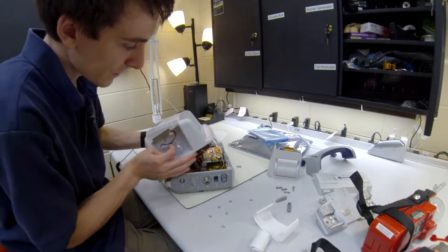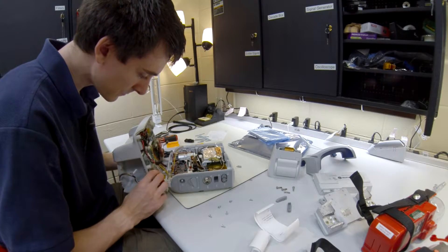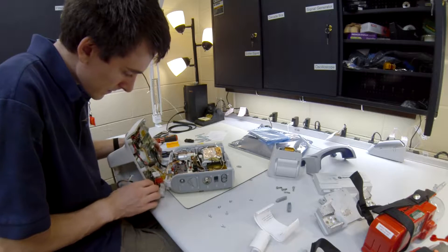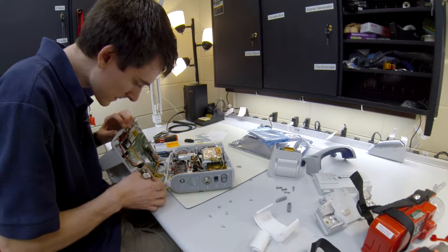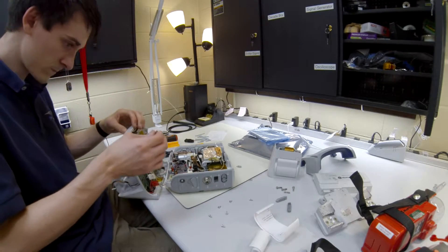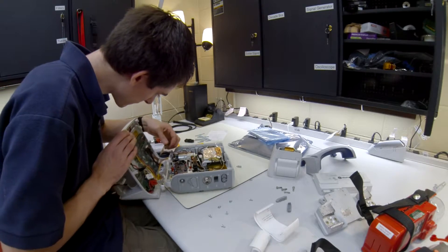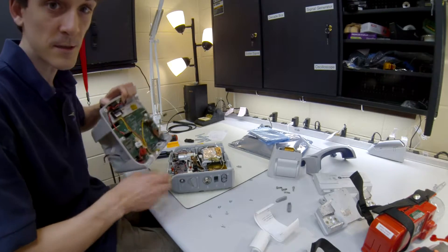What I did was crack the back end open and I pulled out the various cables that were connected. There are a couple of defib cables, battery cables, printer cables, sensing cables, a pacemaker cable, and whatever that one goes to.